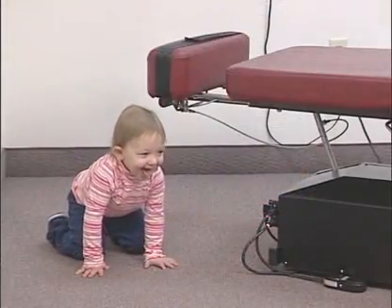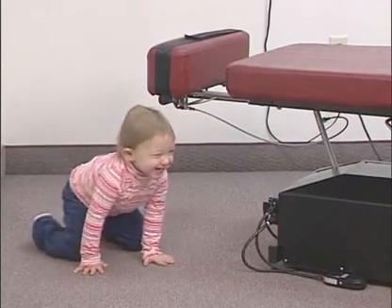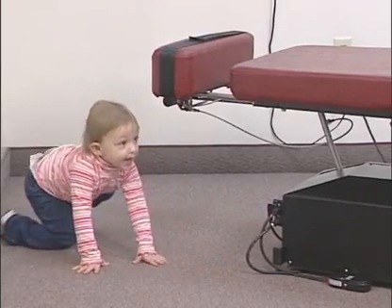Do not leave the table unattended with children in the room while the motor is running. Children could harm themselves under the pelvic section of the table. Have children seated at the front end of the table while in use.